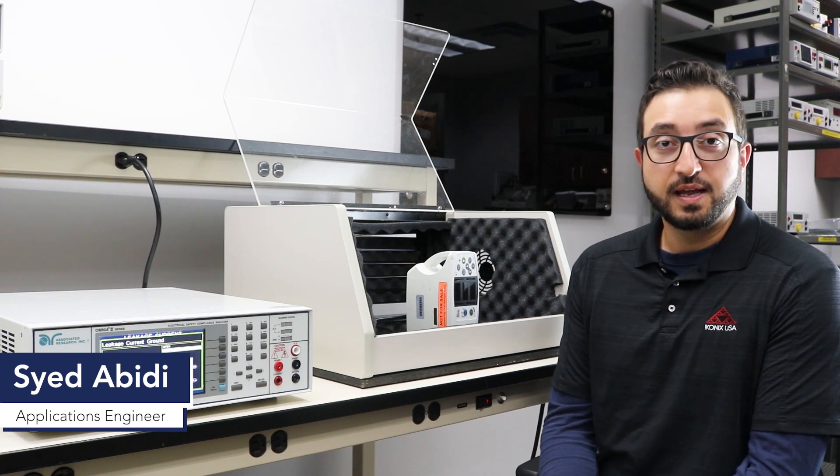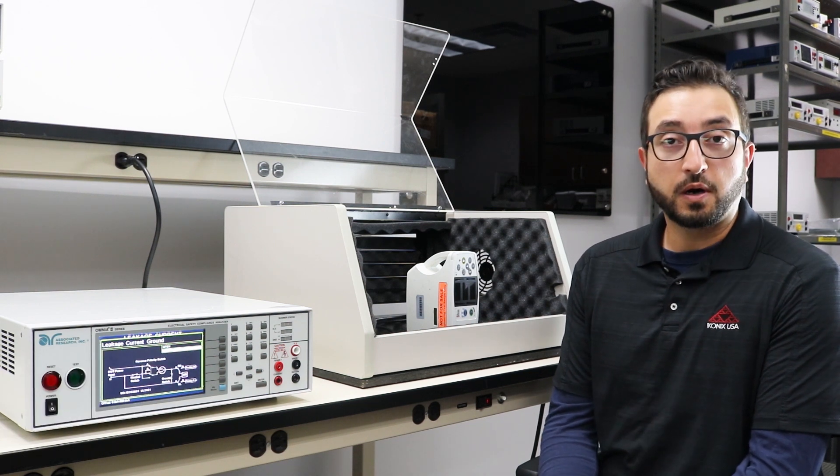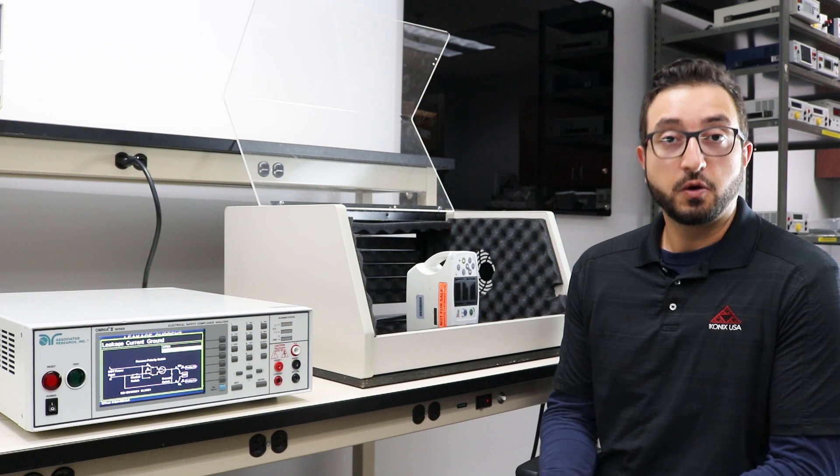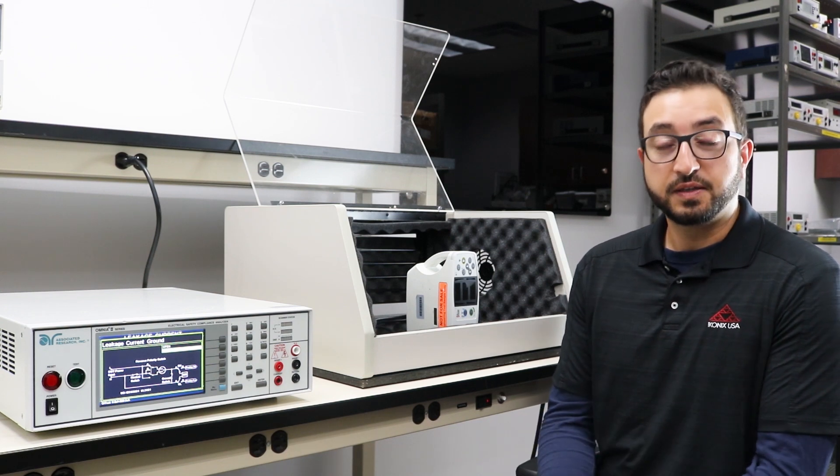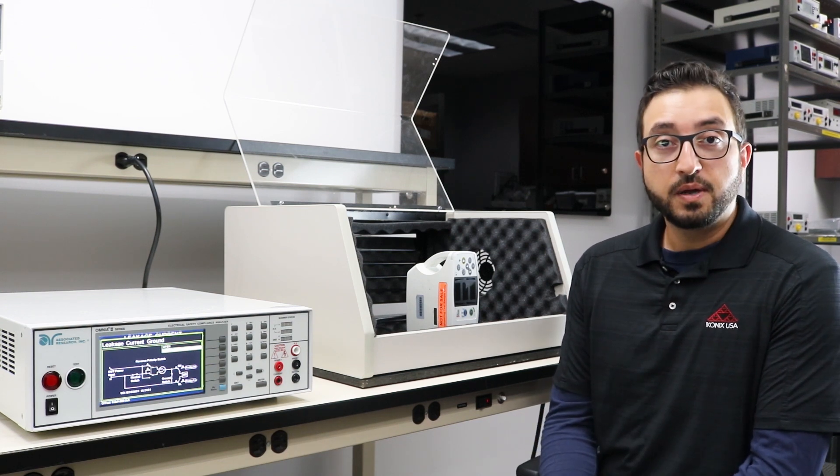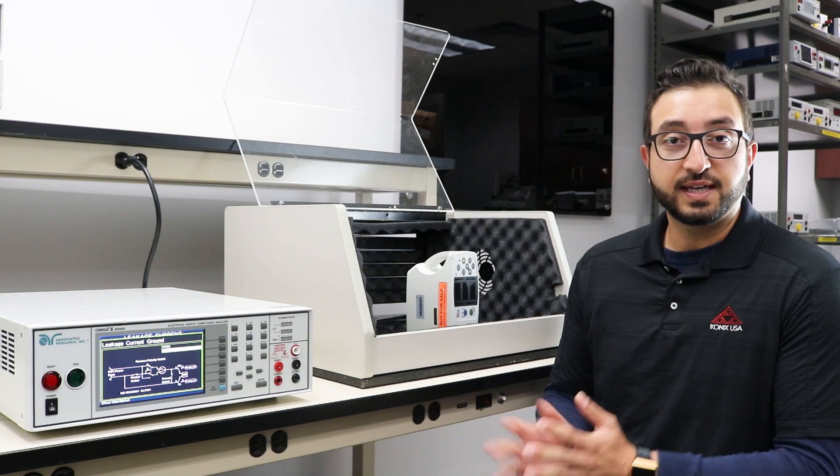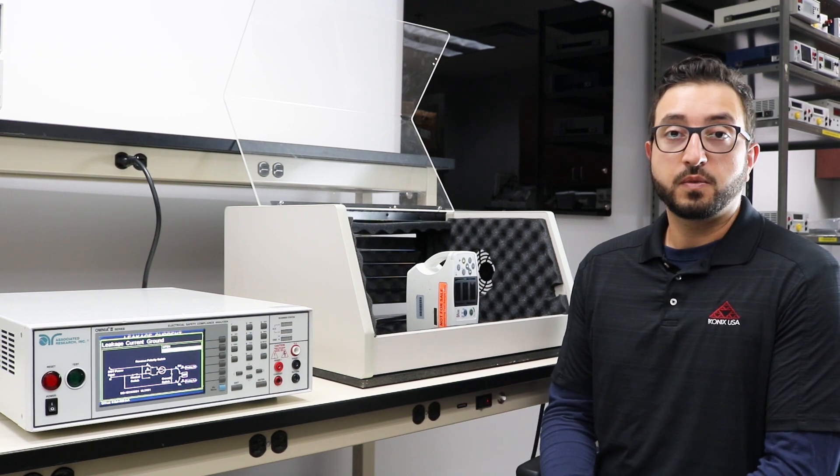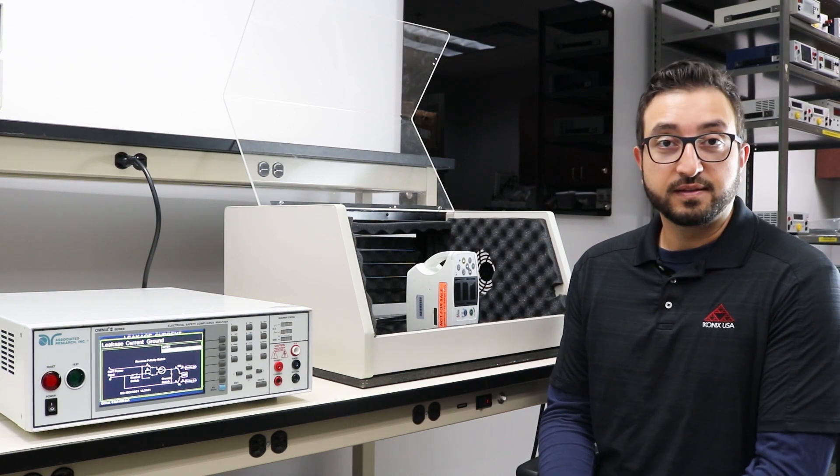Welcome to part 2 of this video series on earth leakage tests. Make sure you watch the first part where we talked about the theory of the earth leakage test. In this video we are in our lab with an earth leakage test setup ready to be performed on our Class 1 type medical device.